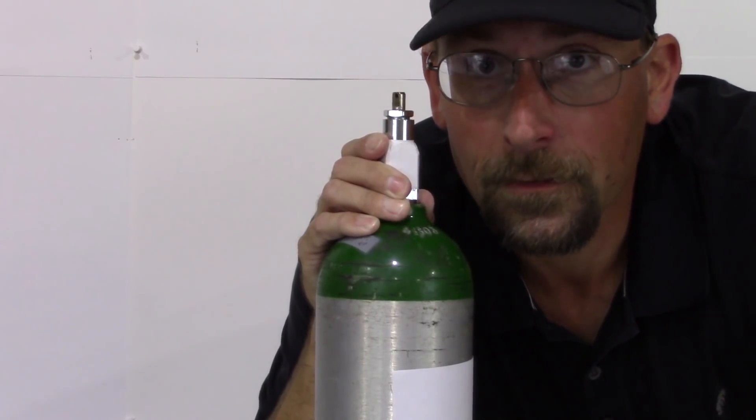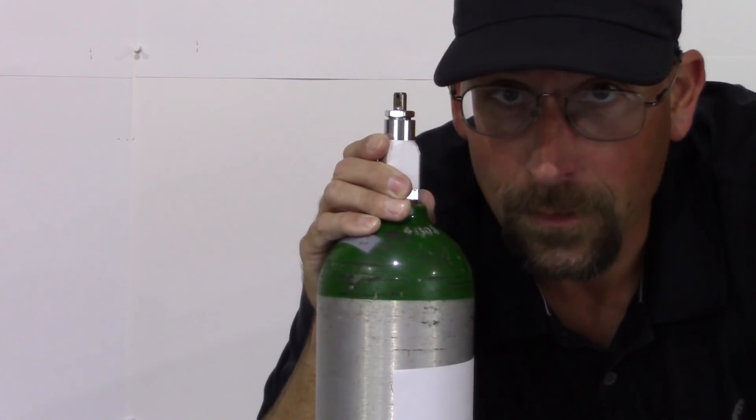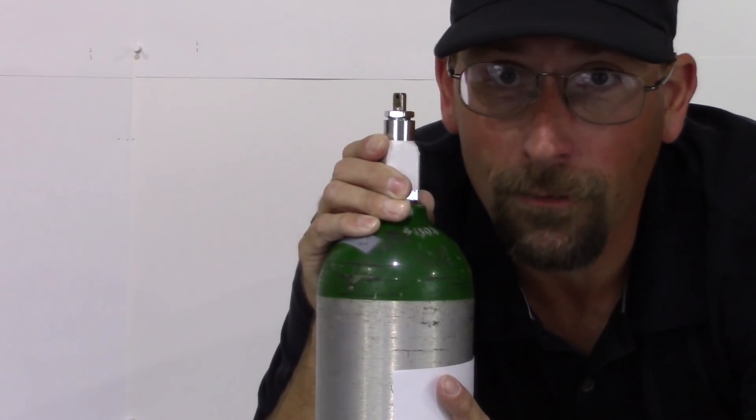How to use an oxygen tank. For everyone that's never used one of these before, this is how we get air on the go.